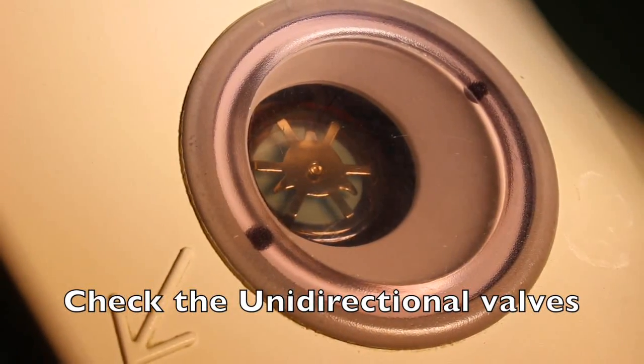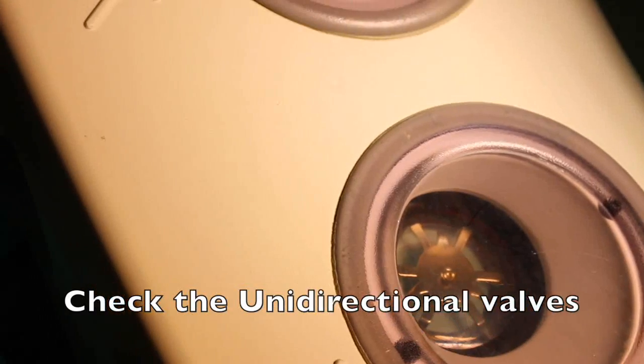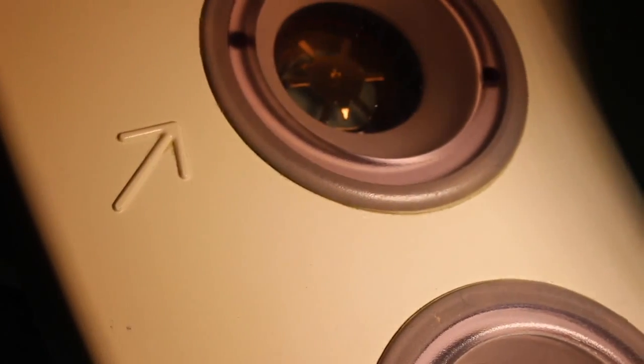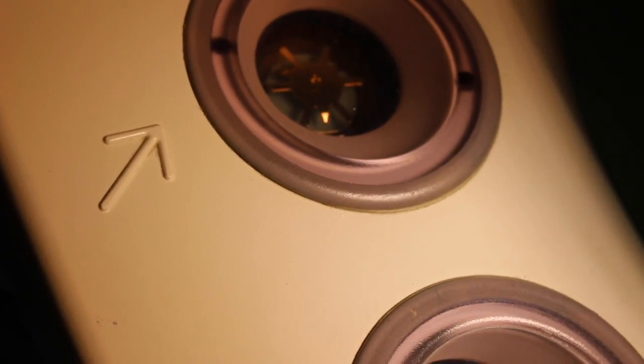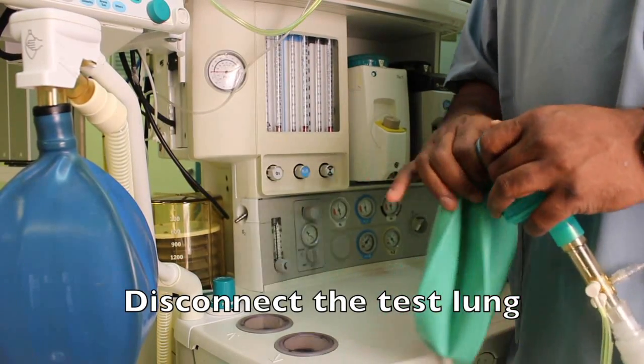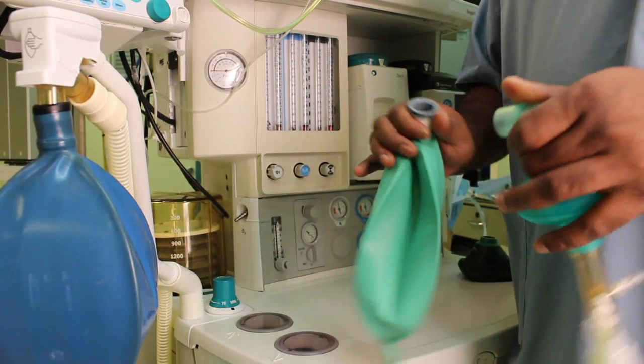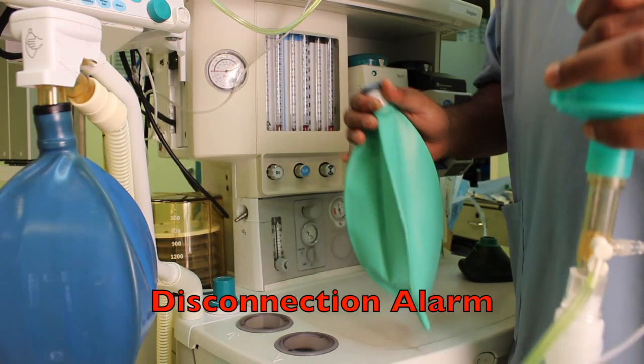Check the correct operation of the unidirectional valves: the inspiratory valve rises on inspiration and falls on expiration; the expiratory valve rises on expiration and falls on inspiration. Now disconnect the test lung and check whether the disconnection alarm is working.